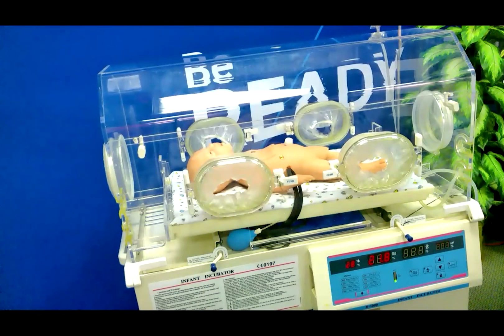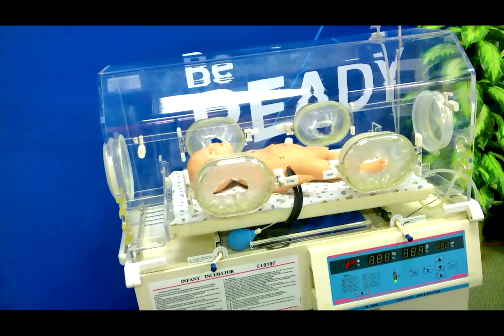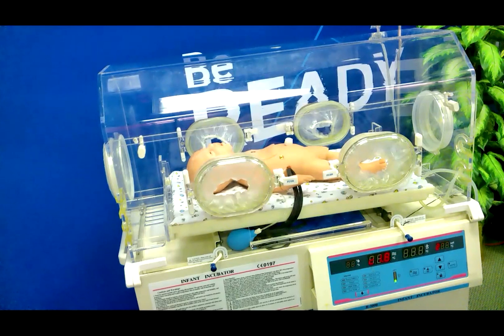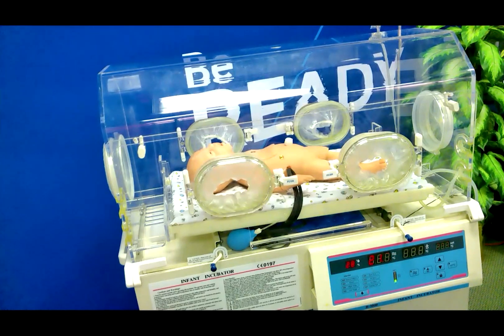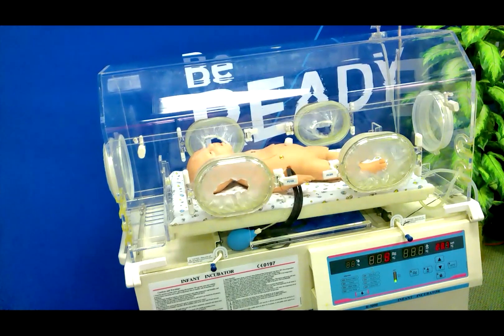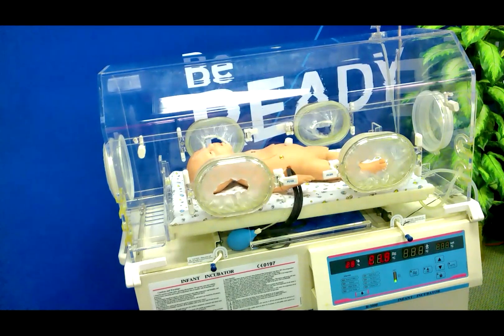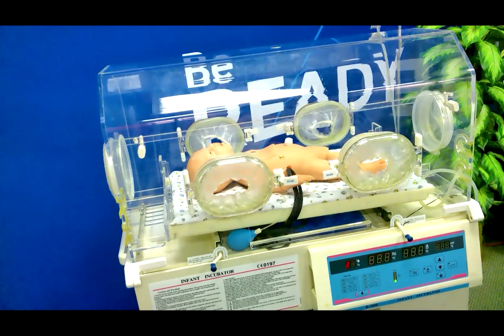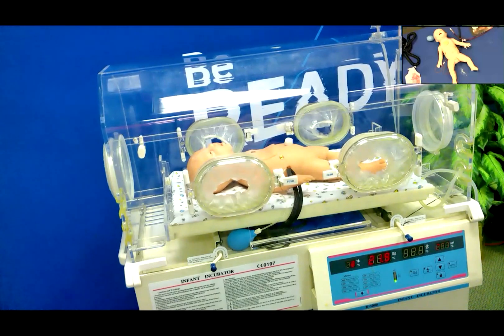Heat. Charlie is also heat compatible and can be placed in an incubator for added realism to any infant neonatal resuscitation program simulation. Practice all of the essentials of neonatal resuscitation with this simple simulator as well as any birthing scenario using Charlie. Are you ready?